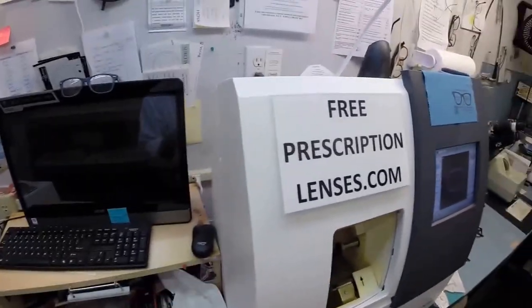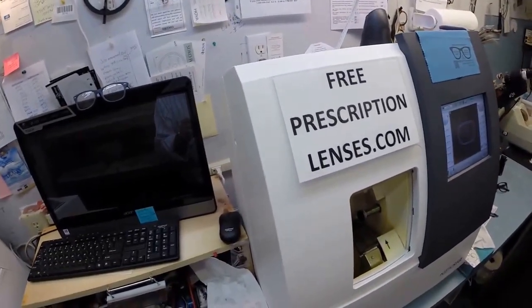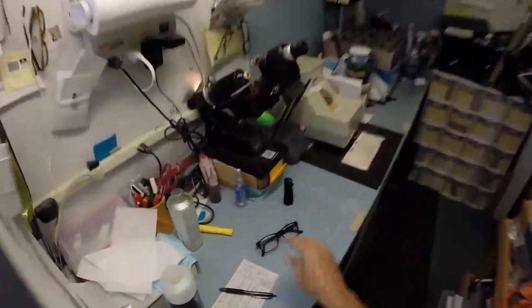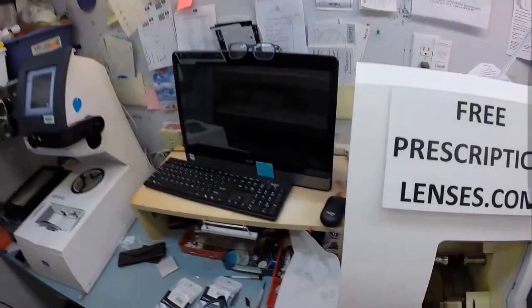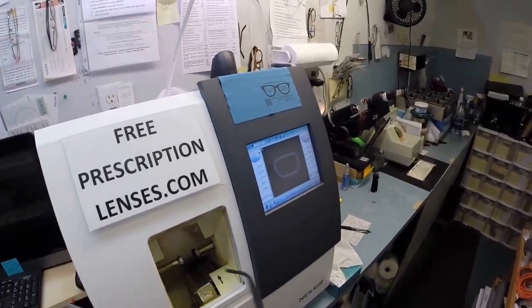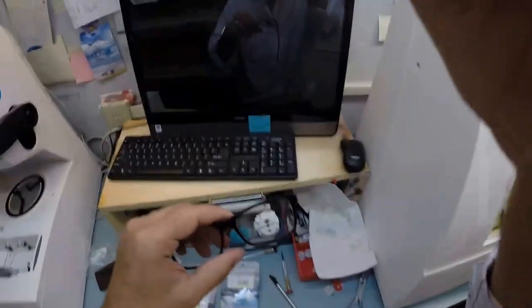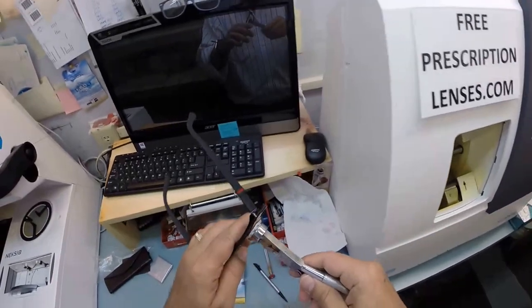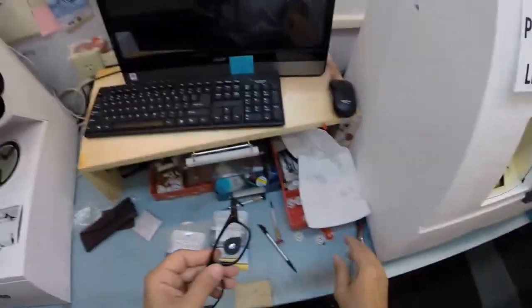Let's take it out of the edger. Wipe everything off here. Where'd that frame go? It's down. Yeah. So let's go ahead and tuck your left lens in. We're going to tuck it in at the outside corner. Push down at the nose. It snaps right in. Hopefully you got all that. I apologize if I miss everything. I am not a professional cinematographer.